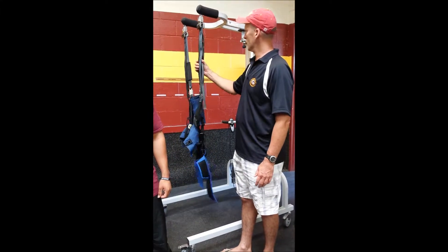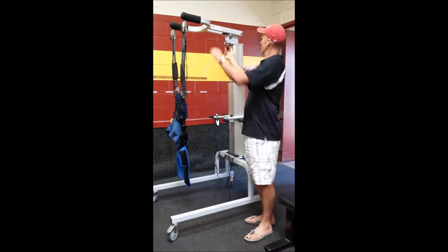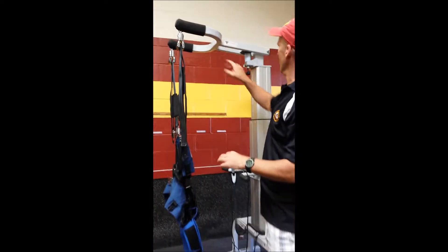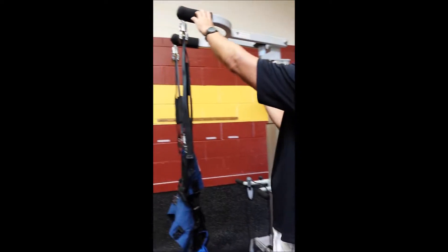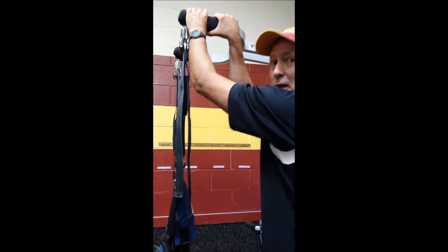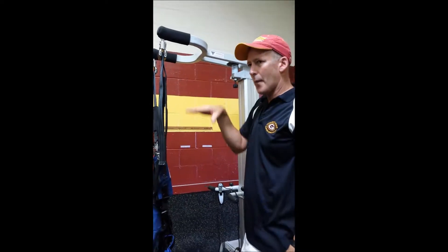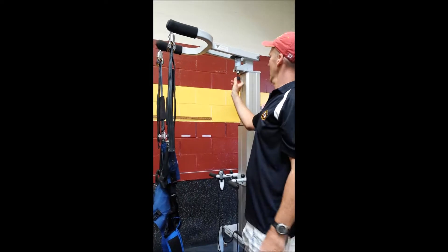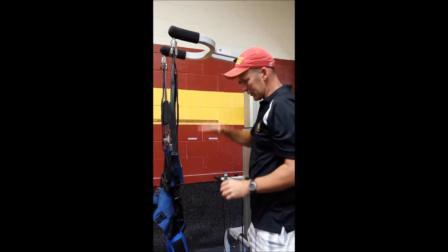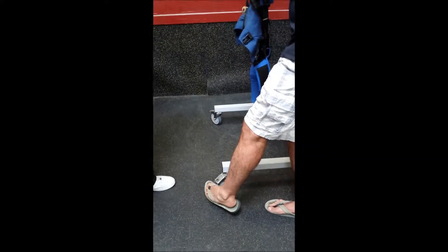It's been a trusty one. They have a couple of gadgets here that were new as of five or six years ago when we got this. This is the yoke, and what the yoke does is when I loosen this, it allows for some vertical displacement. When we walk, we actually move up and down slightly. When they first made these, there wasn't this feature — it was fixed in place and didn't allow folks to have a little bit of vertical displacement.